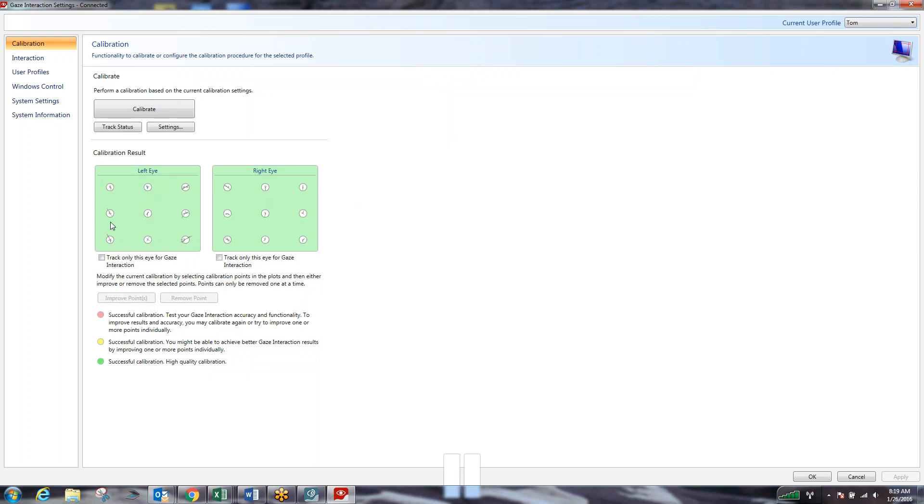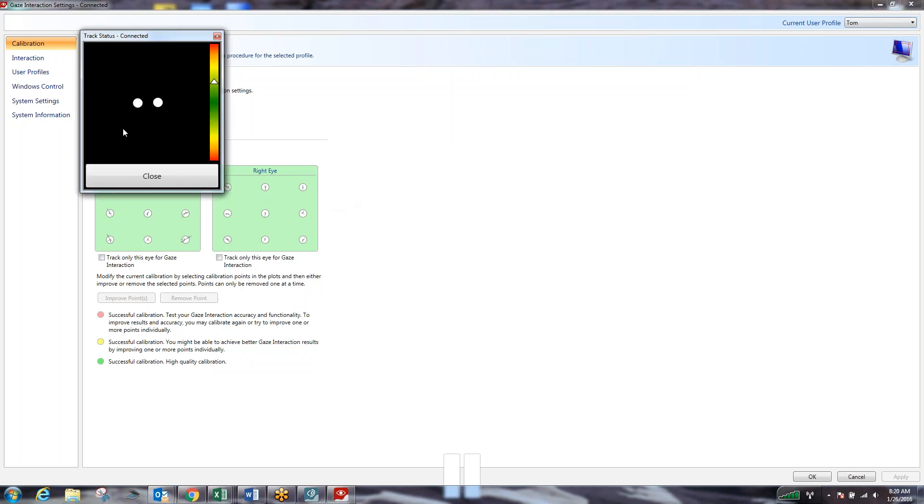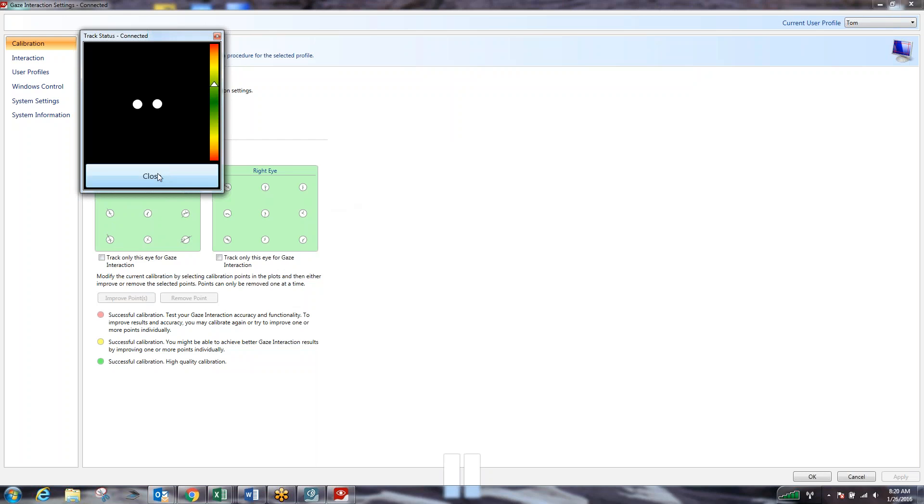As you can see here, these are where the nine points will be on the screen. This is tracking both my left eye and my right eye. So when I hit the calibration button, you're going to see a large version of this track box that's going to appear and it's going to pick up my eyes. Once it does pick up my eyes and knows that I'm in a decent location distance wise from the device, it will start the calibration. Calibration screen will be black and very quickly an orange dot will come out onto the screen and kind of pulsate. Our goal is to look at the very center of that orange dot where there is another little black dot. Follow that around the screen at all nine locations. Every time that the dot is getting ready to move, you'll hear an audible ding sound. So what we're going to do now is you're going to watch me calibrate this device.